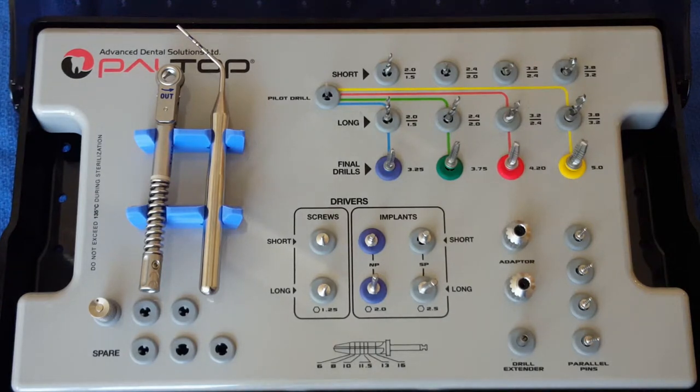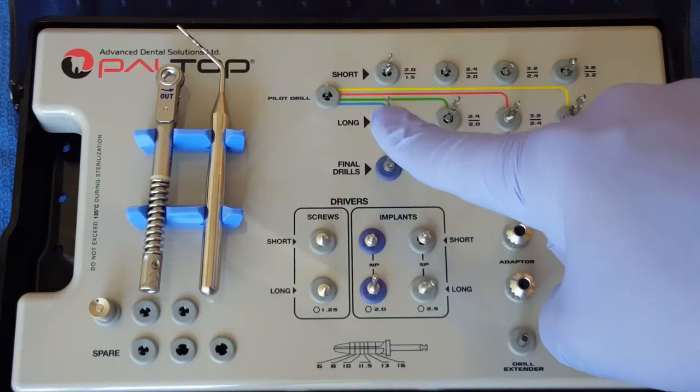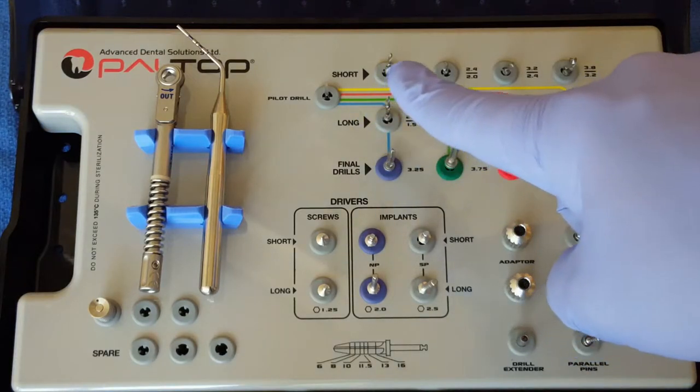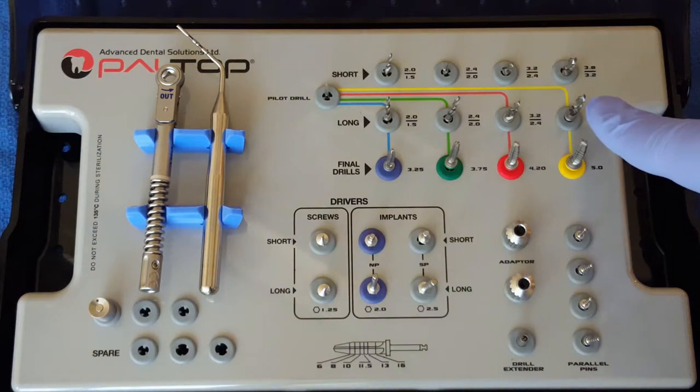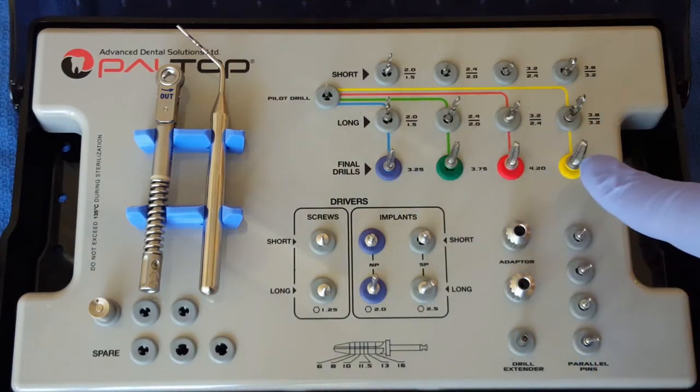The Surgical Kit includes a pilot drill, step drills that are both short and long, and final shaping drills.